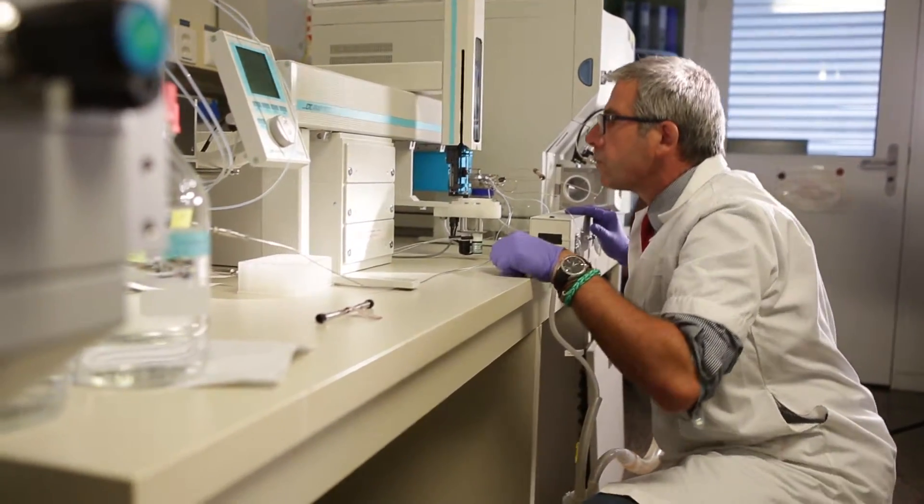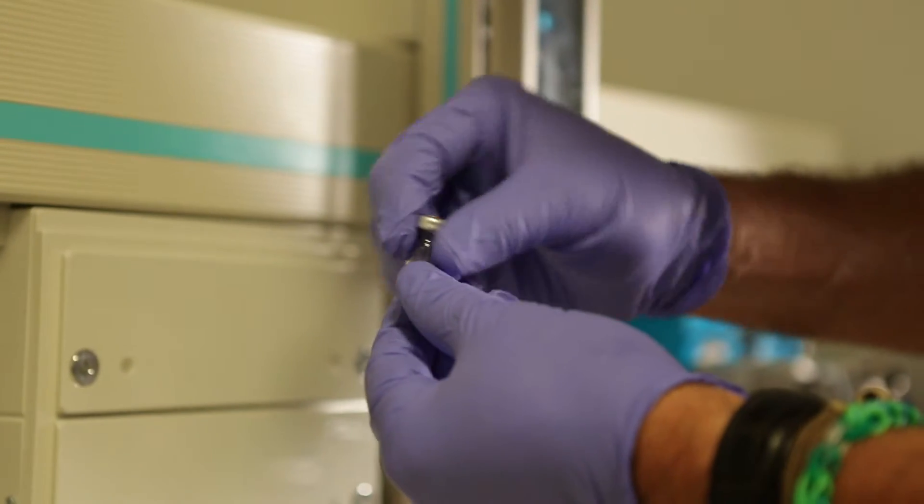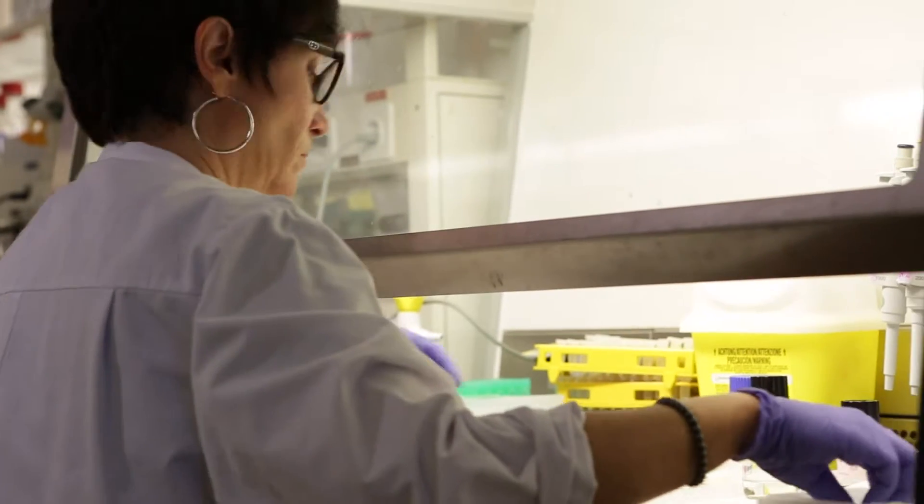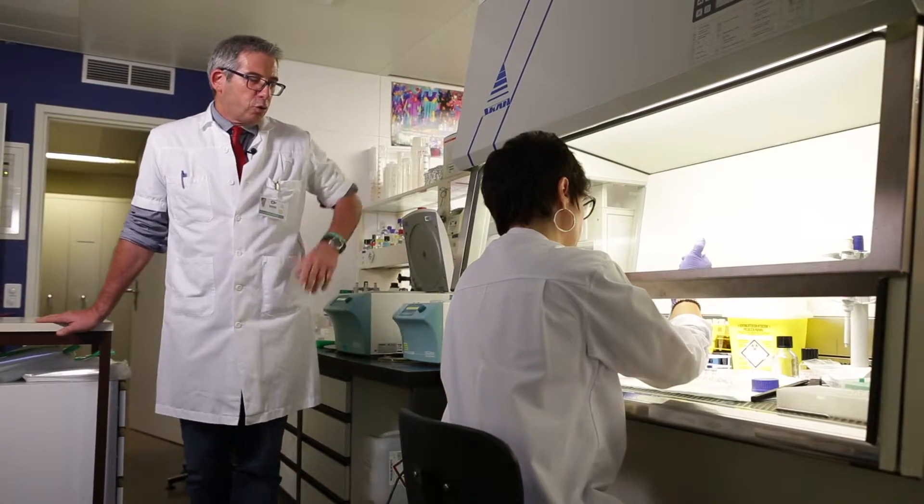Welcome to the Laboratory of Clinical Pharmacology. Our expertise is in the dosage of medication in the blood of patients. We are all different when it comes to medication. Some metabolize quickly, others more slowly, and we can optimize the tolerance profile and the efficiency of a medicine by adjusting the dosage according to the concentration in the blood.